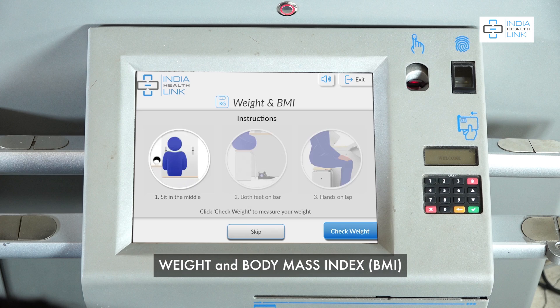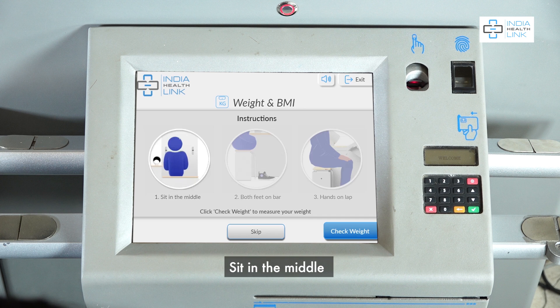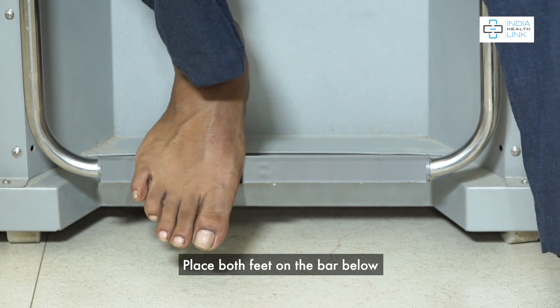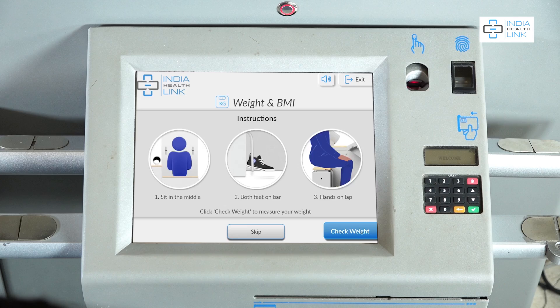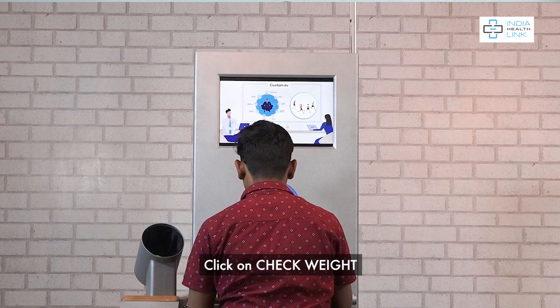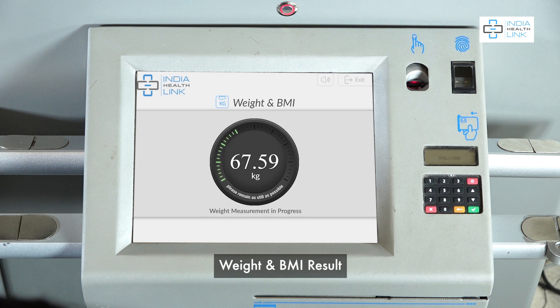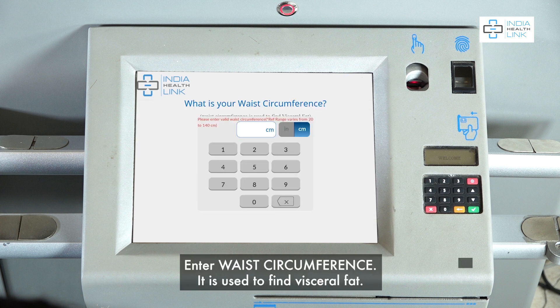Weight and Body Mass Index (BMI). Sit in the middle, place both feet on the bar below, and place your hands on your lap. Click on Check Weight and BMI. View the result.